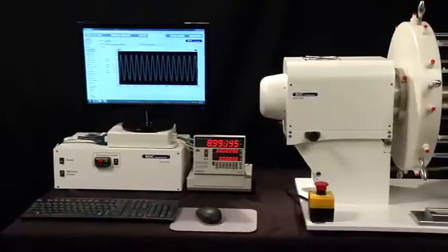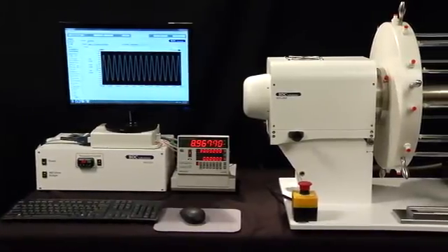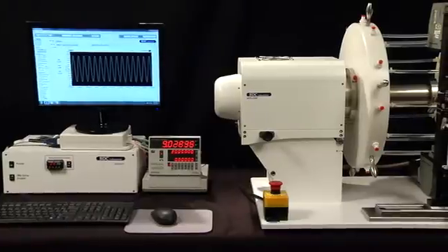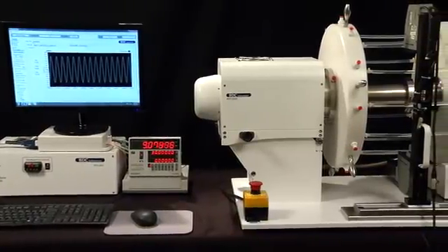Housed inside the drive unit of the RDTL is an innovative and patented rolling bellows configuration. The flexible bellows pressurizes the mock vessels.